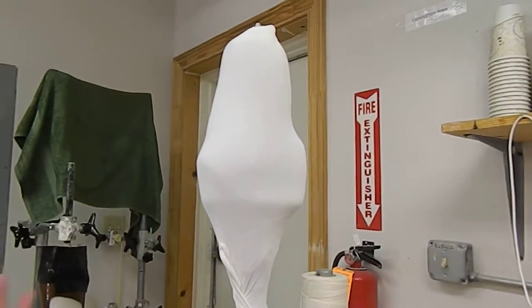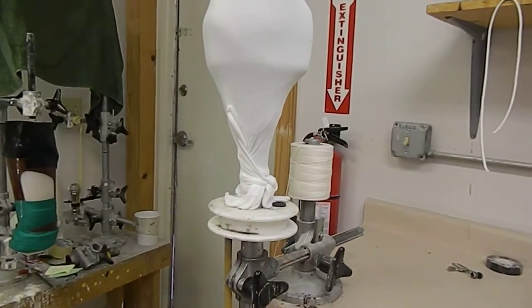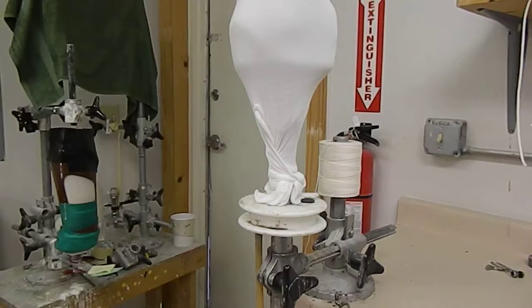And before I pull my bag, I always check. Carbon floats around, different stuff floats around, just to make sure it's clean. And I always check my color before I throw that.